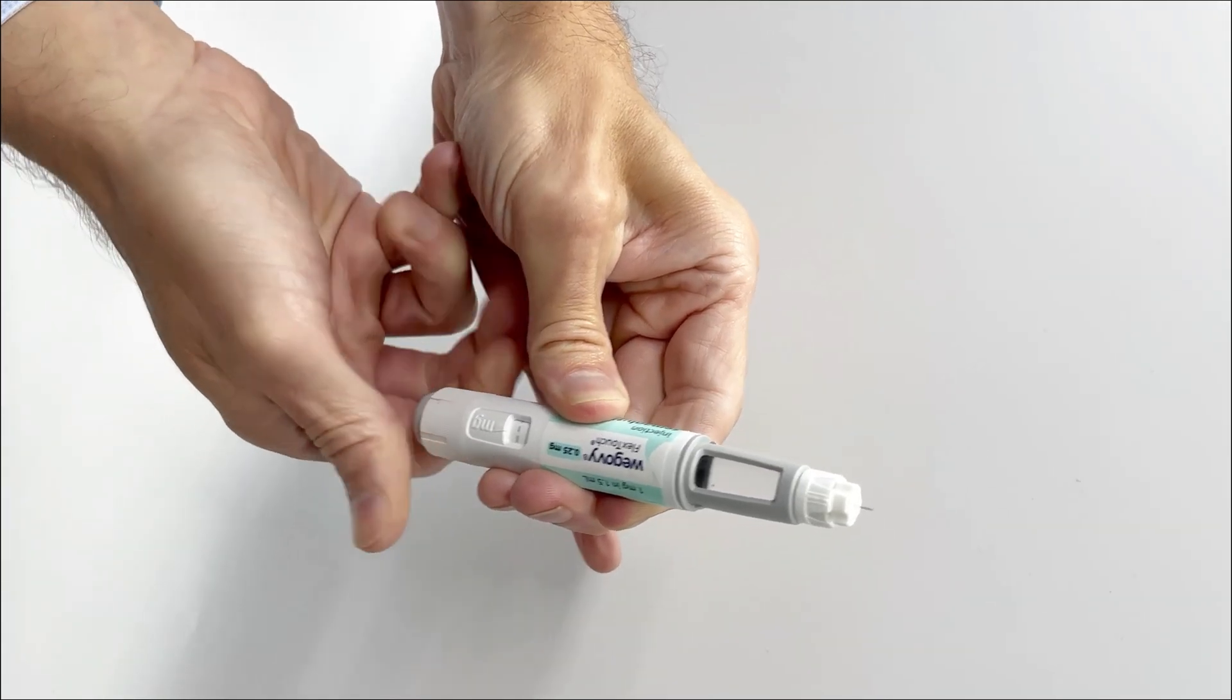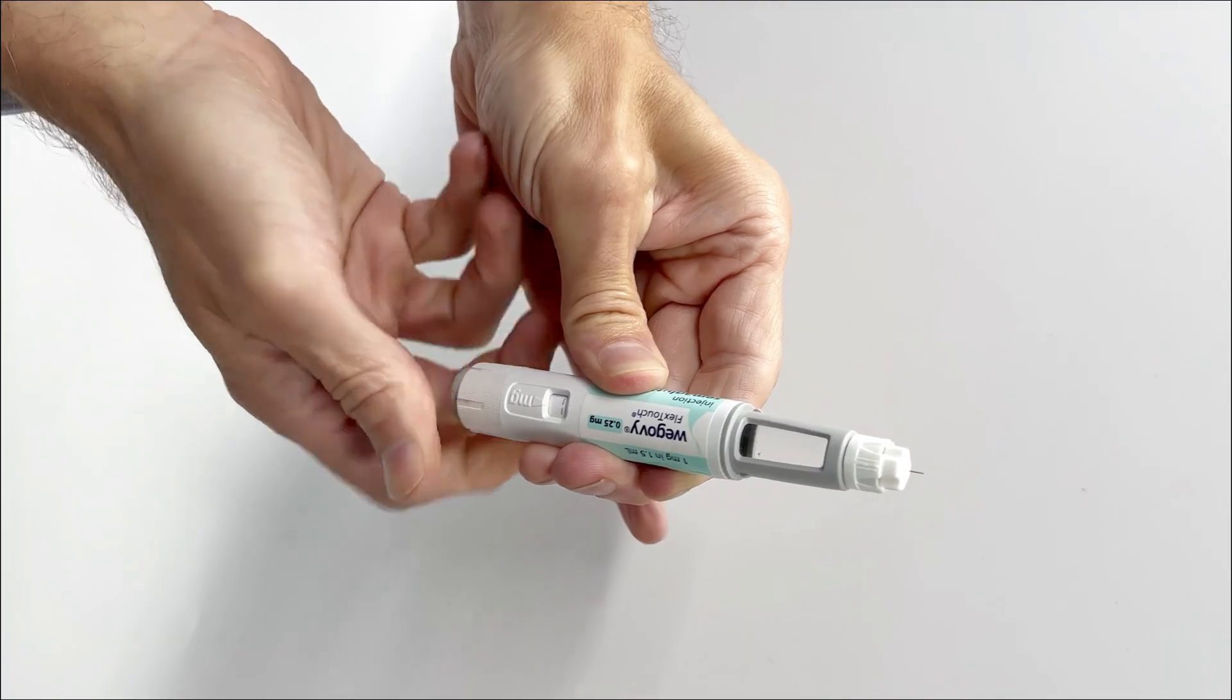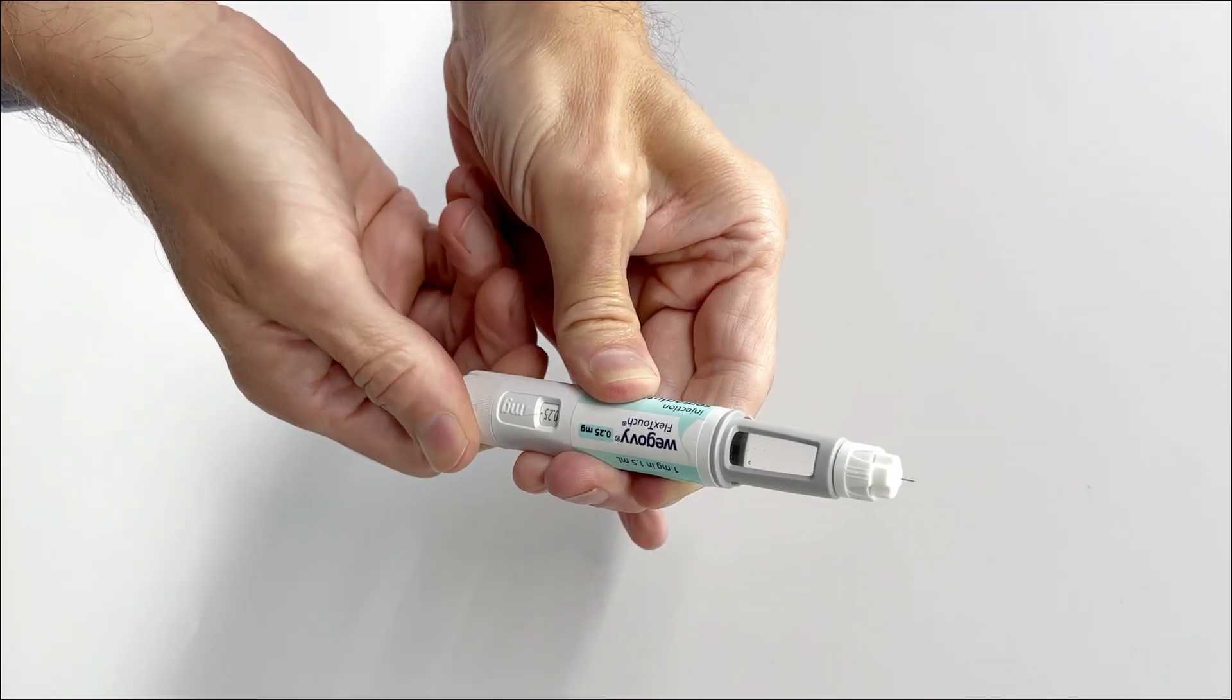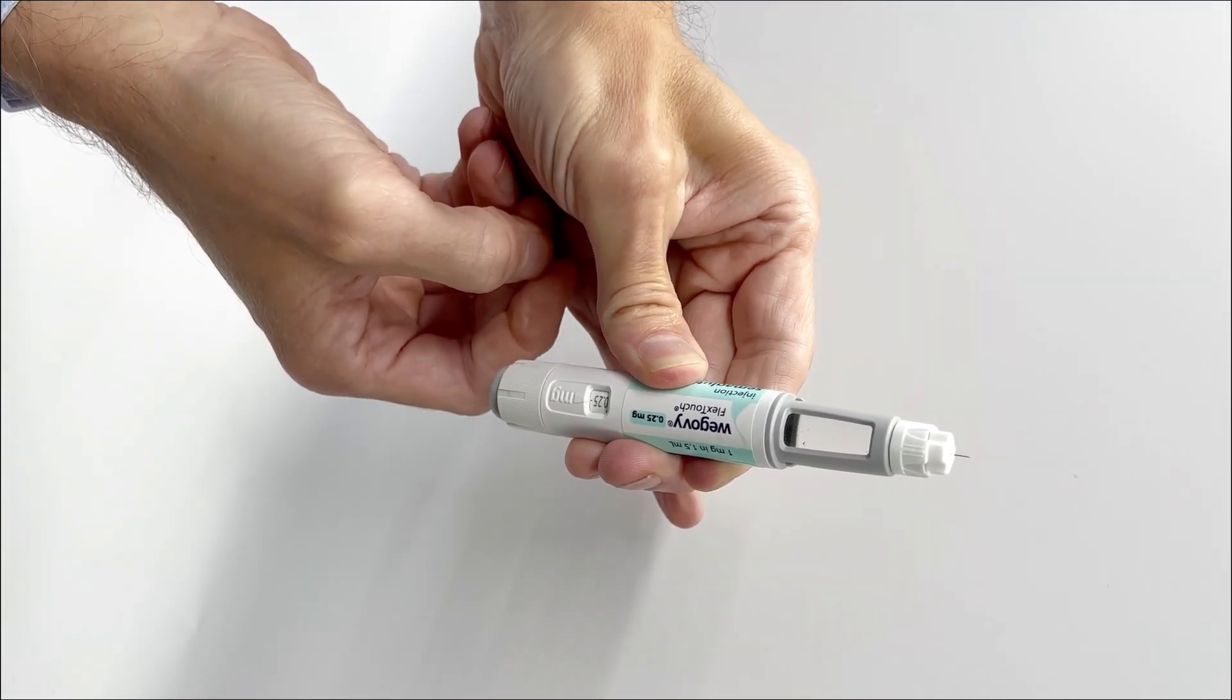Now you can turn the dose selector and prepare for an injection. Do this by turning the dose selector until the prescribed dose appears in the window.